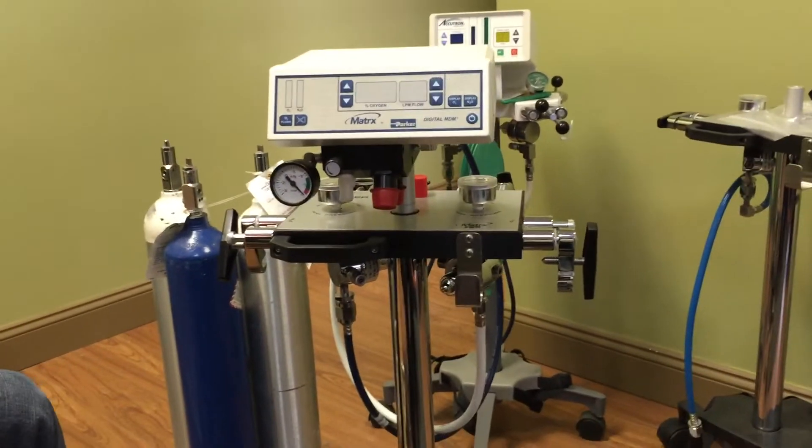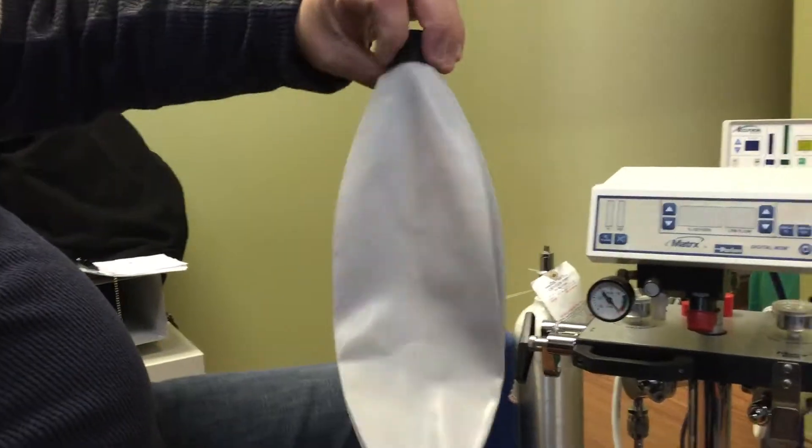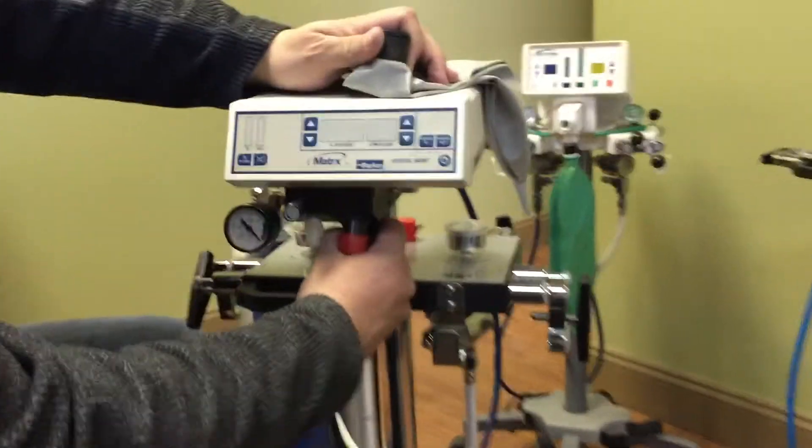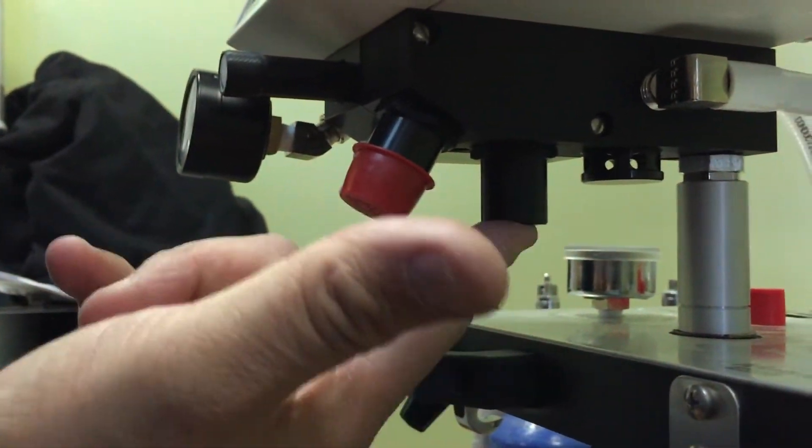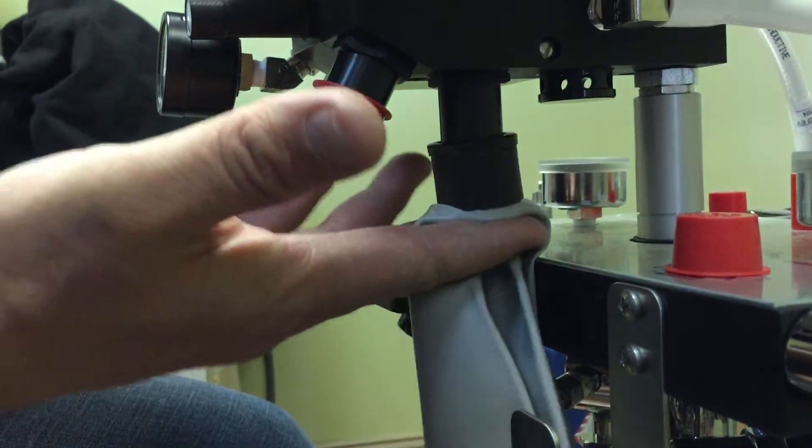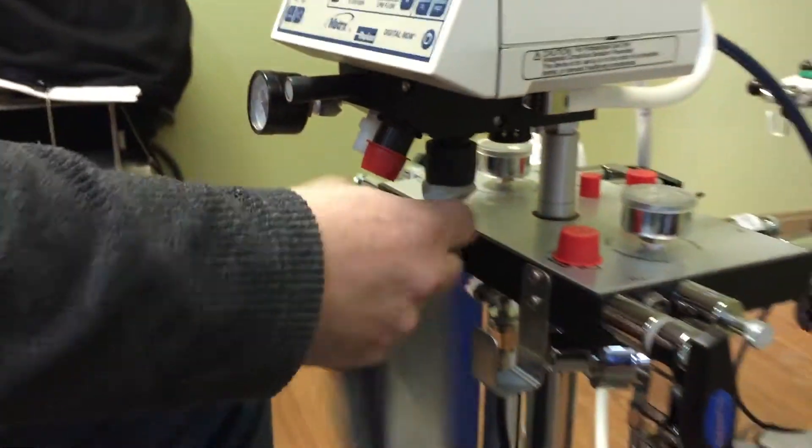We're going to go ahead to the front. Setting up the scavenging unit. We have a standard breathing bag. This is where this is going to go. We're going to pop off this red cap down below here, the bottom of the unit. That's where our breathing bag goes. We're going to take our breathing bag, two fingers like this, just slide that thing right up on there like that. Once that's hooked up, we're good.